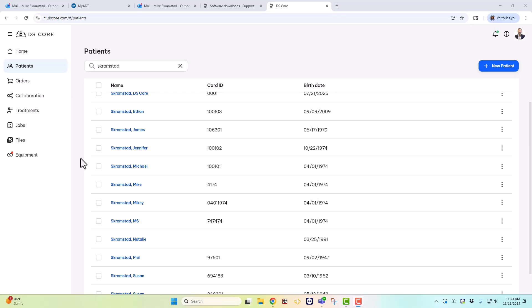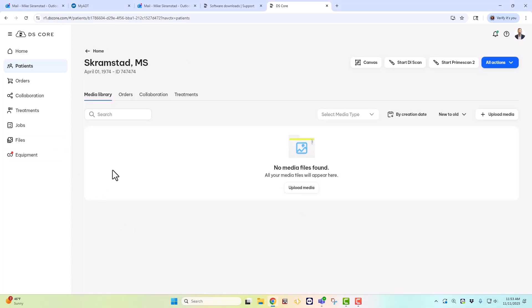And finally, and the most important part, step number three. You have to begin your scans within DS-Core and not start your scan from the CEREC or Connect software. And what I mean by this is, let's go select our new patient, notice there's no media found. Now I've often heard that people are scanning their cases with their PrimeScan and they're not going to the right place or they're going into the unassigned files. This is because you're not starting the scan in the right place. So it's very simple to do, just go into the patient's chart within DS-Core.